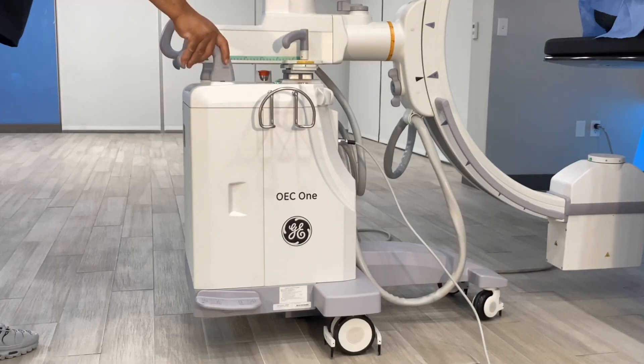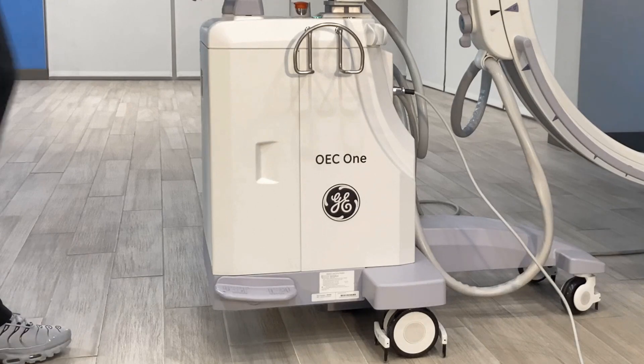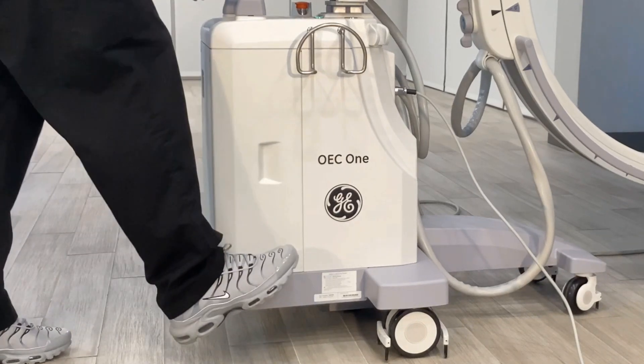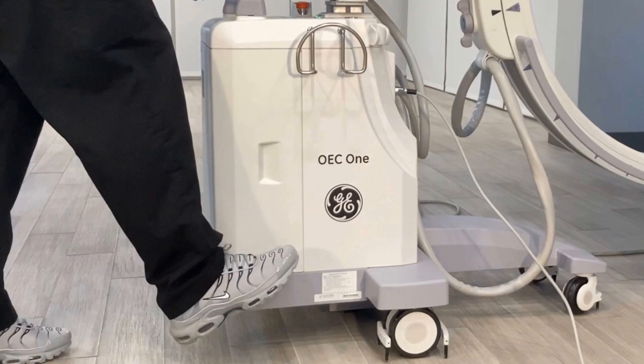Turn wheels into the desired position. Press the brake pedal to the brake position to lock the rear steering wheel. Please note, the right steering handle will not turn when wheels are locked.